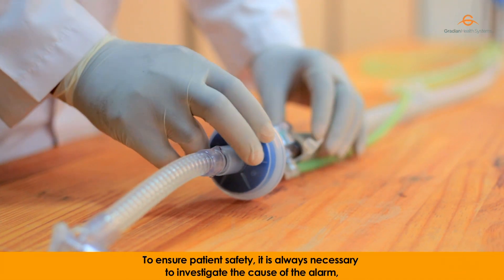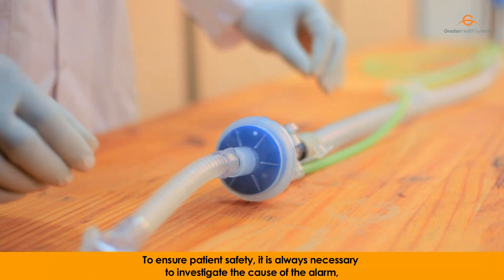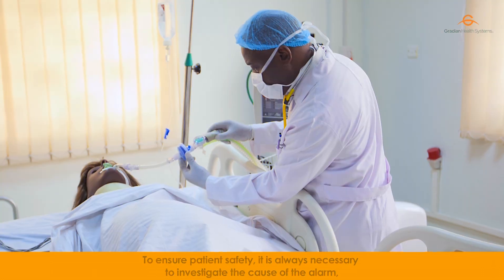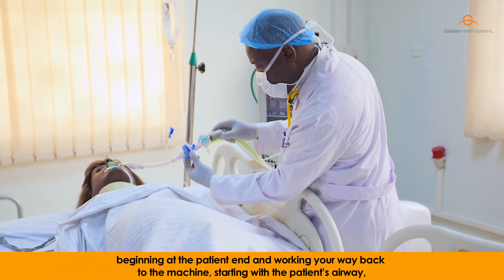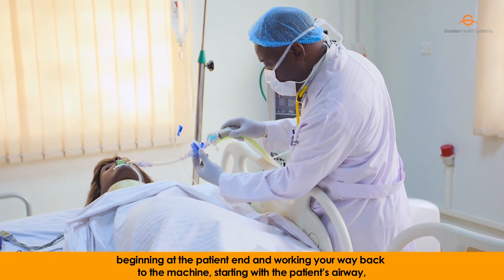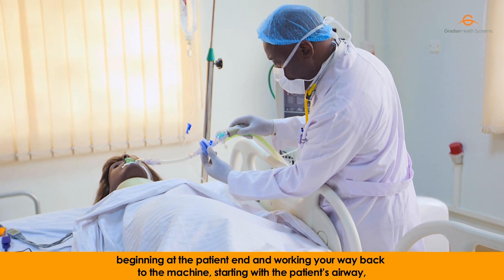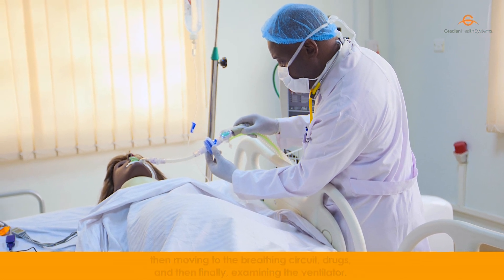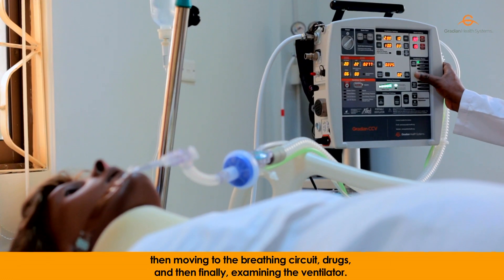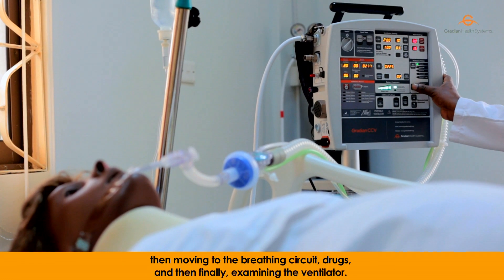To ensure patient safety, it is always necessary to investigate the cause of the alarm, beginning at the patient end and working your way back to the machine — starting with the patient's airway, then moving to the breathing circuit, then finally examining the ventilator.